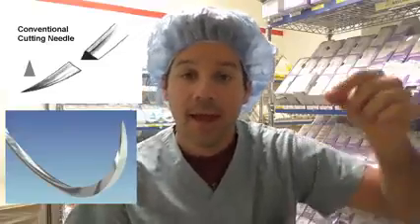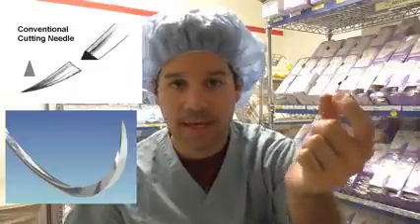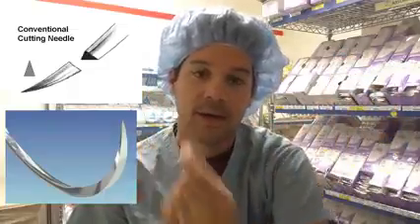When it comes to cutting needles, obviously it sounds like it cuts, because it does. It has a sharp tip, and as the needle goes back off of the tip, it's actually bladed as it goes down the needle, and that's used for cutting into tissue that is really, really tough. If you're out in the field, you'll recognize the 4-0 Monocryl PS2. That PS2 is a reverse cutting needle, and it's used for closing the skin.